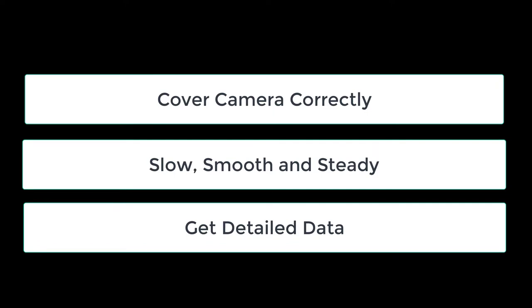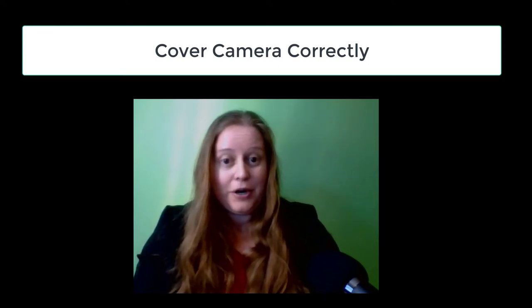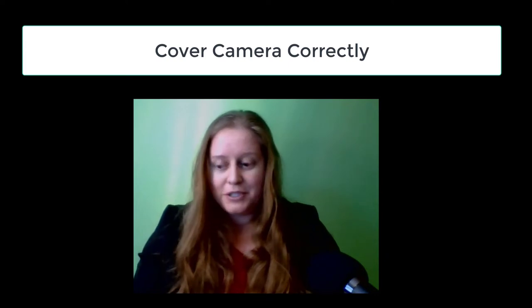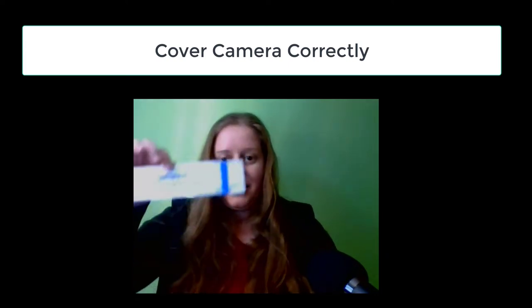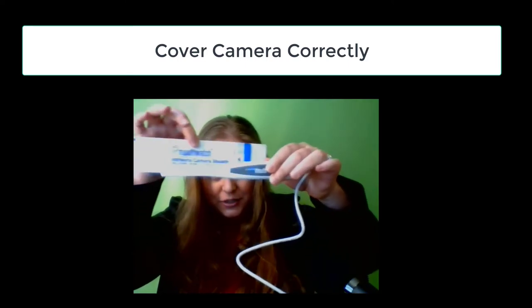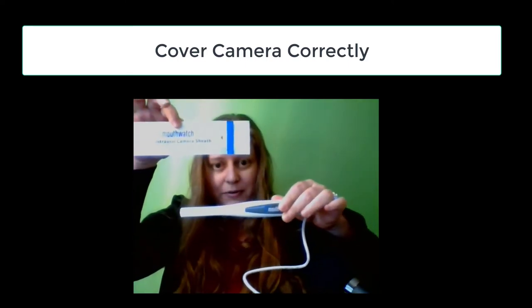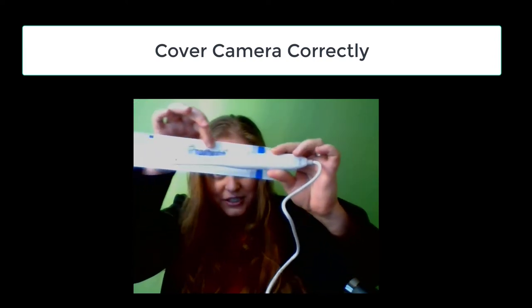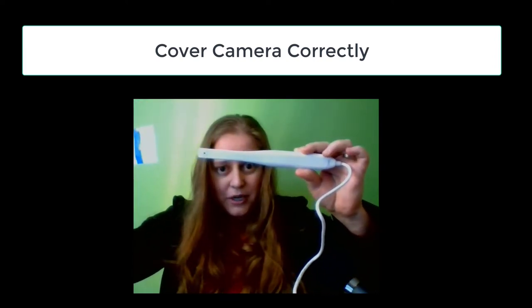One really common problem with using an intraoral camera is actually putting the sheath on upside down. There's only one side of the sheath that the camera will shine through and give you a clear image. A lot of times we'll put it on backwards and wonder why our images are blurry. When we look at the pack and the camera, it slides in this direction.